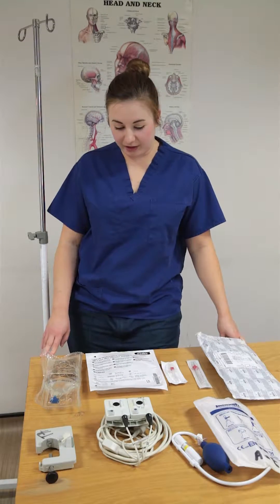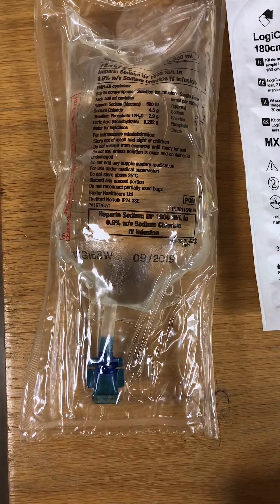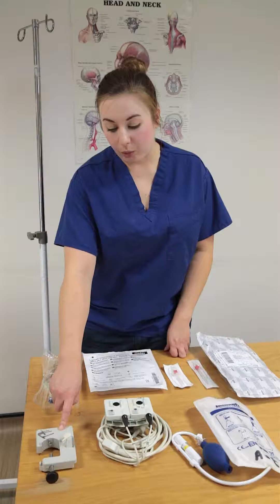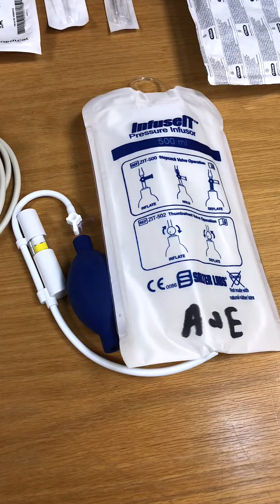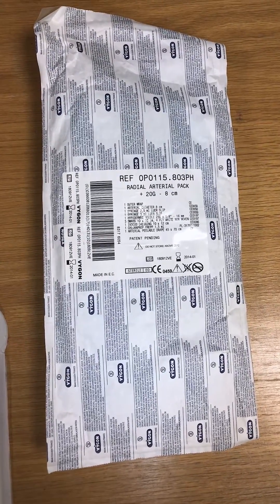So this is the kit that you'll need. You're going to need a drip stand, a 500ml bag of heparinised saline or normal saline, one single pressure giving set, one transducer fixer to go onto your drip set, one transducer cable, one 500ml pressure bag, and then a pre-packed arterial set.